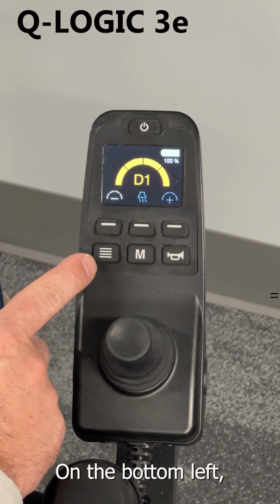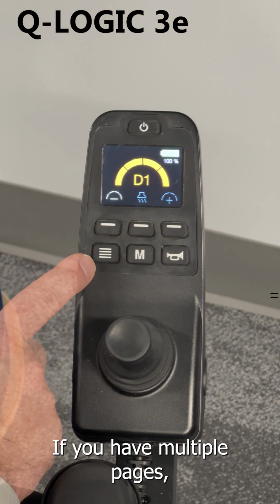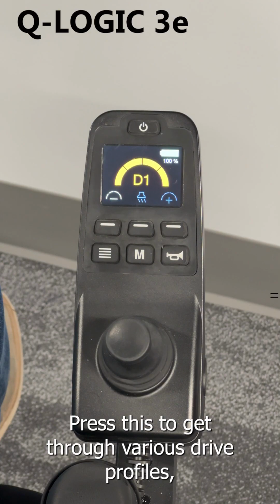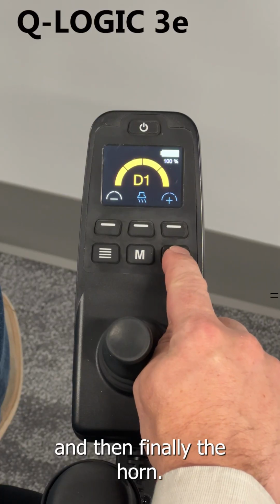On the bottom left, you have your page button to change menu icons if you have multiple pages. The mode button, press this to get through various drive profiles, auxiliary menu, and seating. And then finally the horn.